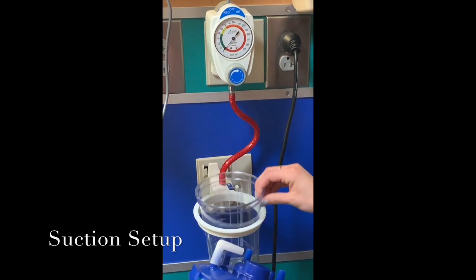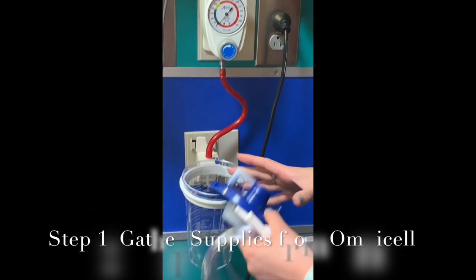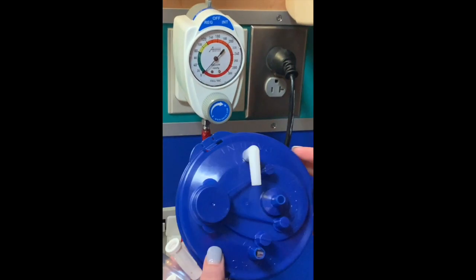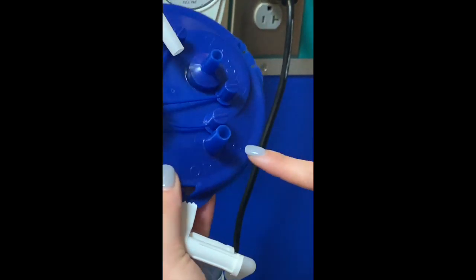Okay, so we're just gonna talk through how to set up suction. When you pull your suction out of your Omnicell, you're gonna have the canister, which goes in this holder on the wall, the lid, and then this is obviously your actual suction machine. So there'll be a few different labels. It'll say patient, vacuum, and then ortho.